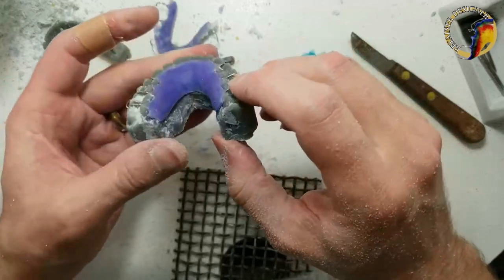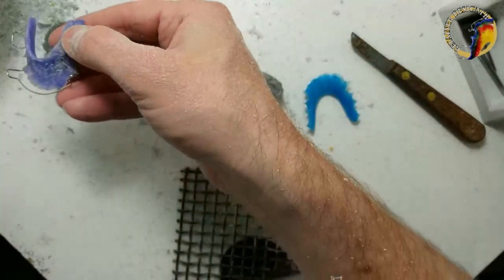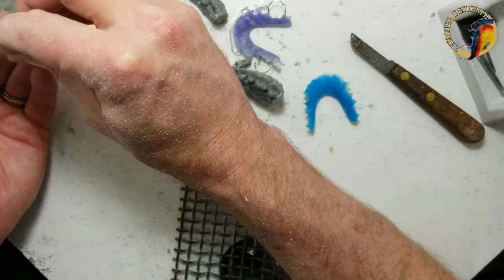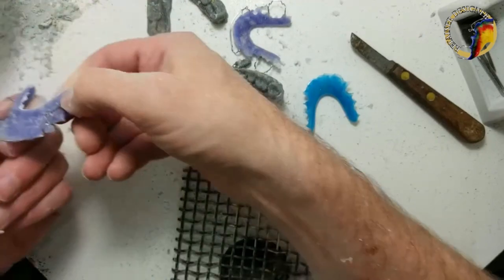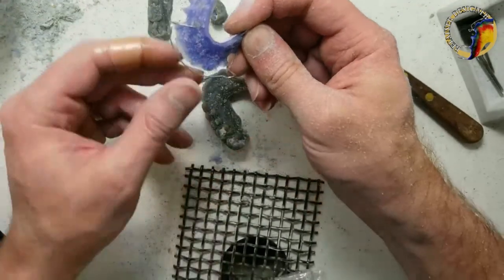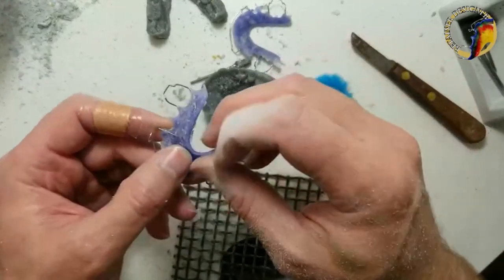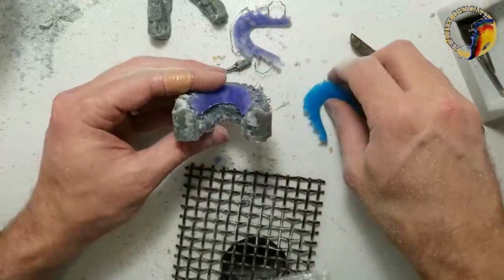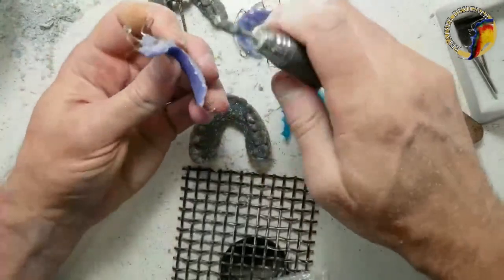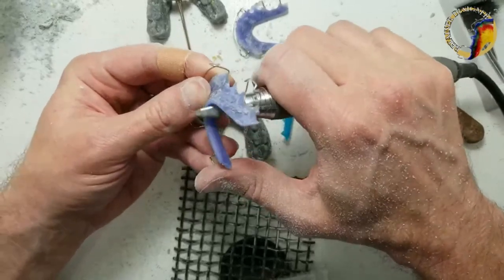You can see how this is hanging over — my wife probably trimmed this and played it safe making it taller. I can go back to the wheel. Remember the clear coat I put on there — I can see where the wires are, so I can get a little closer. If I had covered them in luminary blueberry all the way through without the clear base I wouldn't be able to see the wires. Now that I've shortened it, it should match what was originally on there. For repairs this method is great — just strip out the wires and replace all the acrylic.